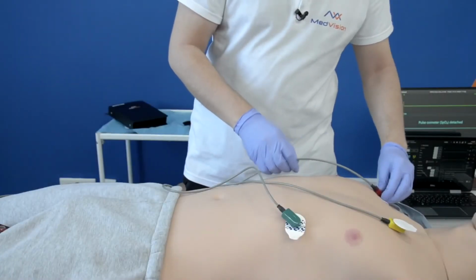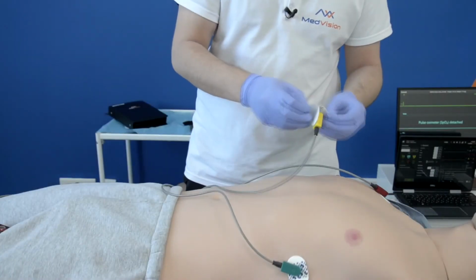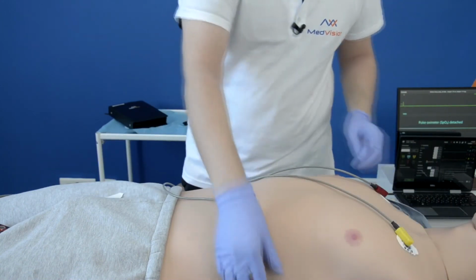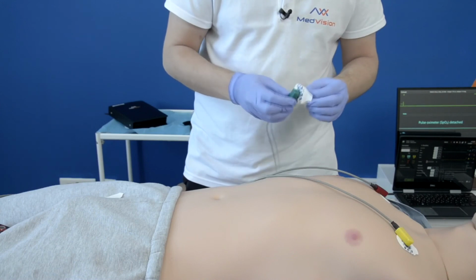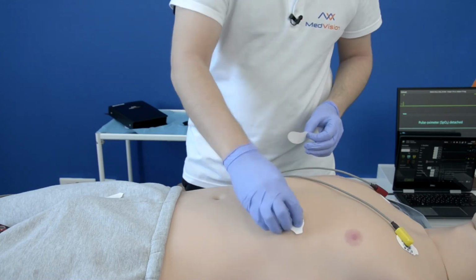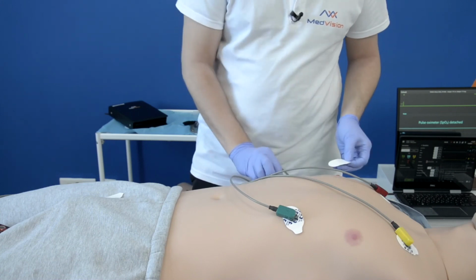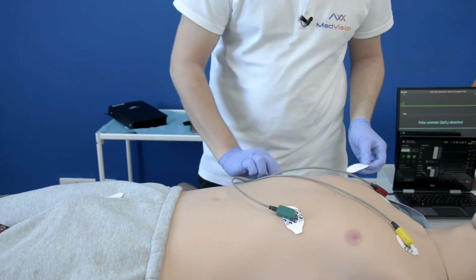You can use real ECG stickers with Leonardo and just stick them on the skin, and we've even tested leaving the stickers on for 2 weeks and they left no visible marks after we removed them. Under Leo's skin, there are sensors for correct electrode placement, and it will show this in the action log.